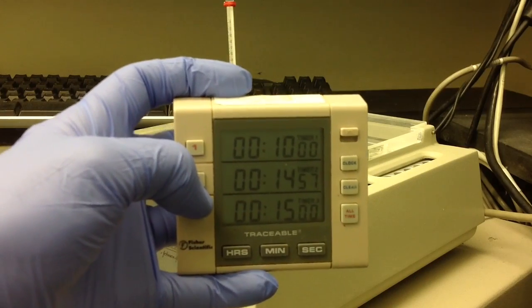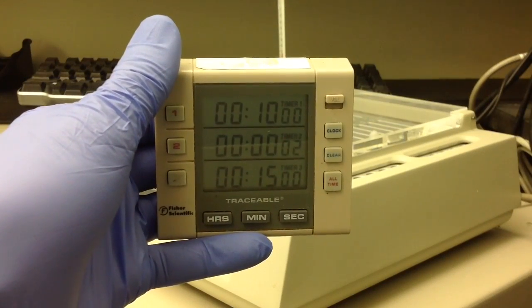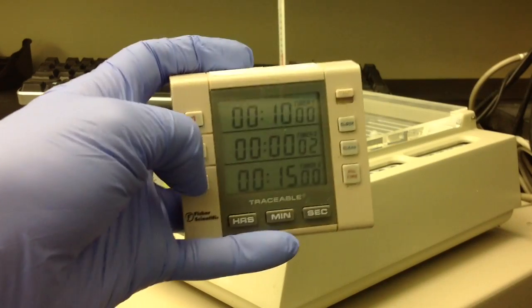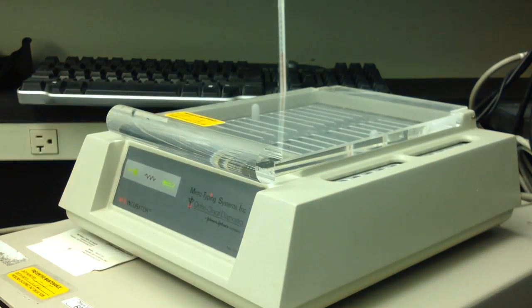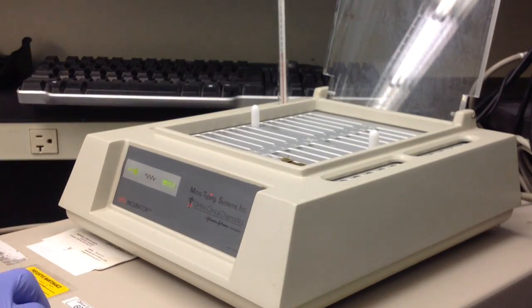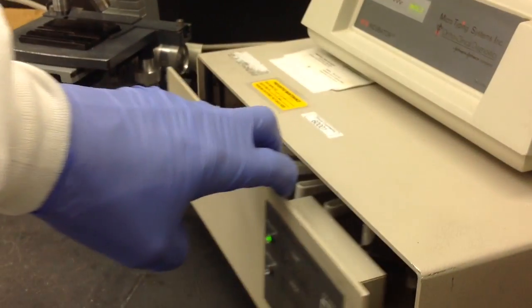After your time is up, it's pretty much one more step. You're just going to take the gel card out of the incubator and put it into the Ortho MicroTyping Systems centrifuge that's designed to fit these cards.